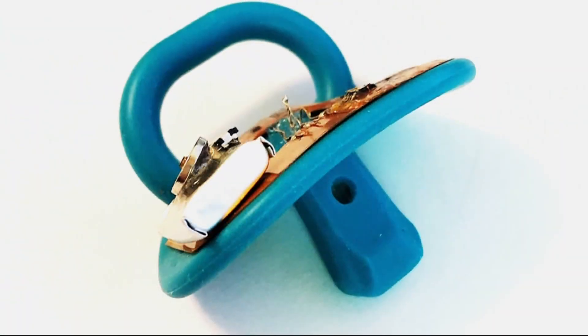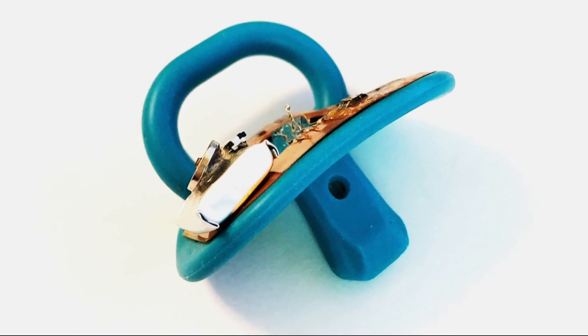Our next plan is we want to make these pacifiers more recyclable and affordable so anybody can get it from the shelf of the market.